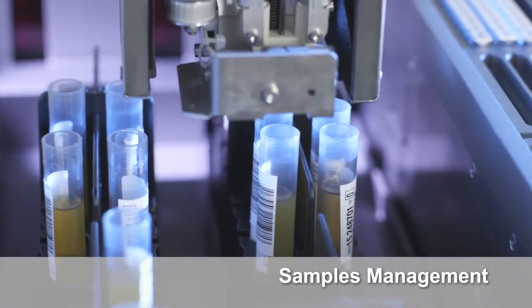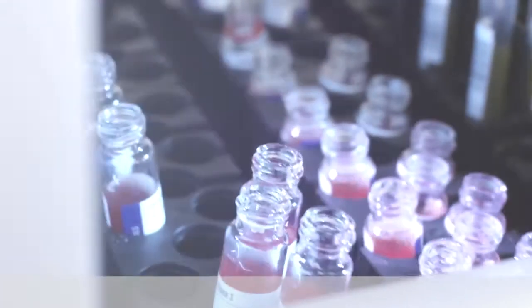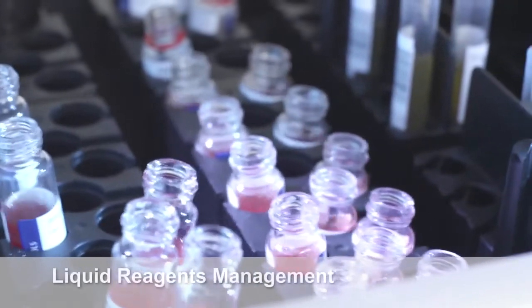Samples are handled with the same Erytra samples holder, which can be used by all the systems, giving you additional flexibility.